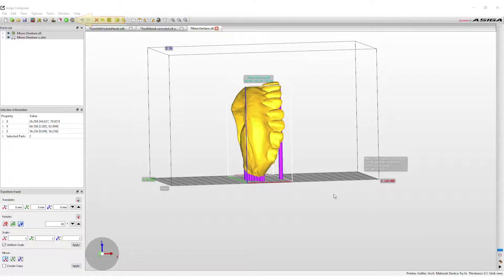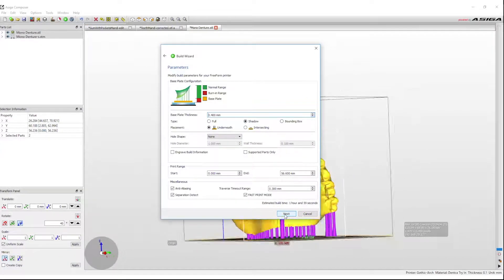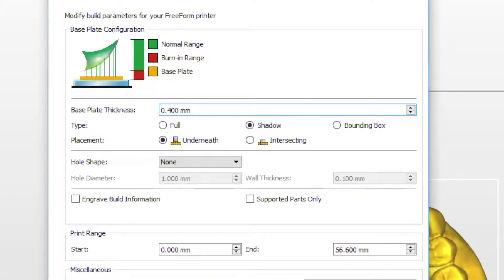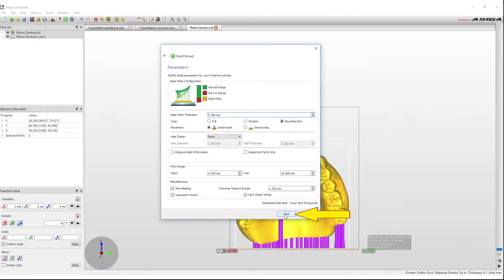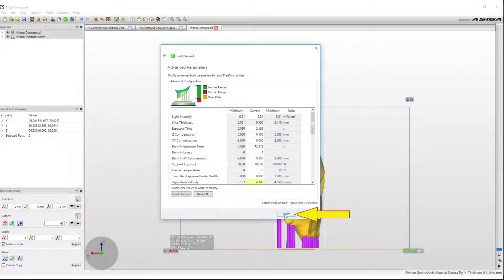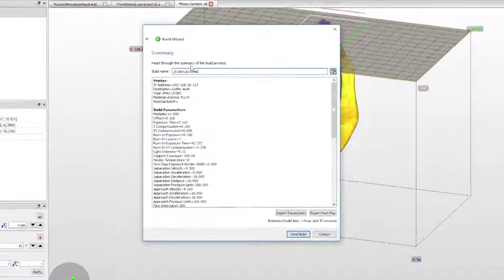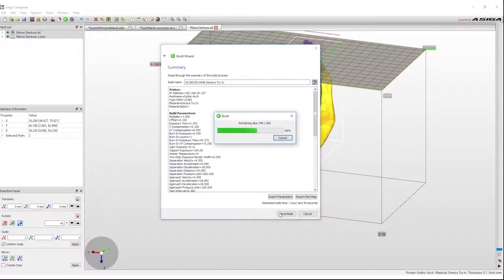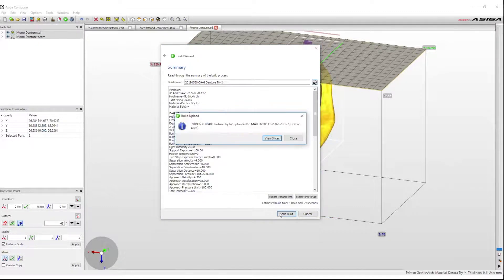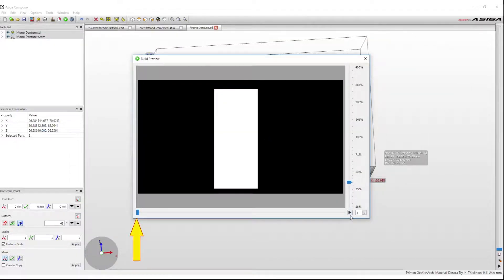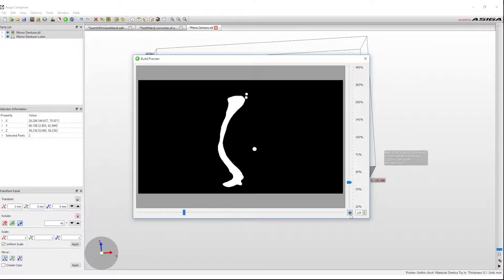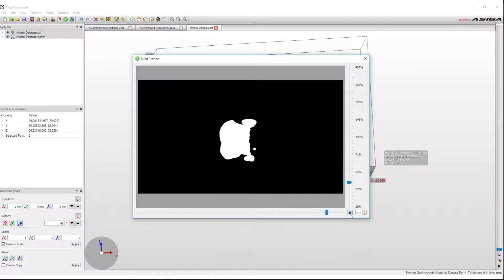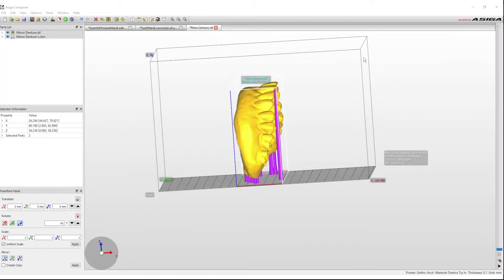Next, select the Build Wizard. Select Next and in the parameters window change the type from Shadow to Bounding Box. Then select Next again and in the summary the build can be named. Click Send Build and the design will be sent to the printer. When the build is submitted, the slices or layers can be viewed in the build preview. The progress arrow along the bottom of the window can be moved to see exactly how the layers will be built in the printer. The slide on the right side allows you to zoom in and out of the print preview. The printer will now complete the print process.